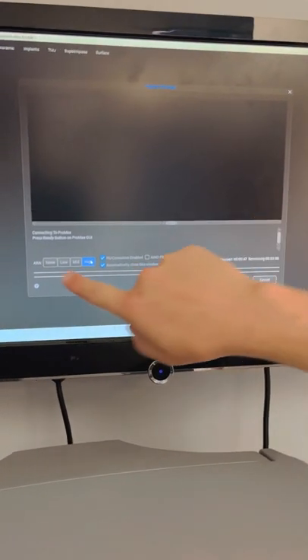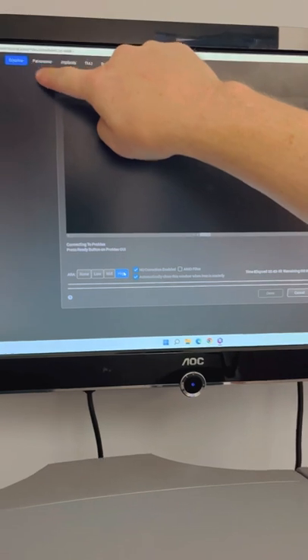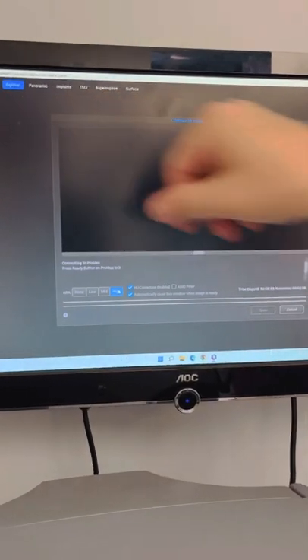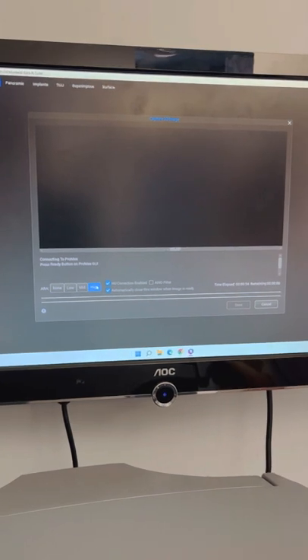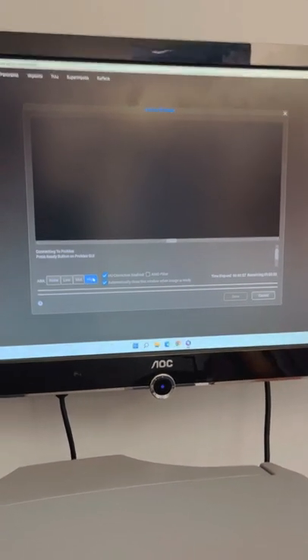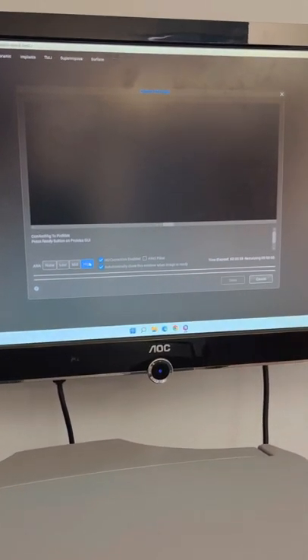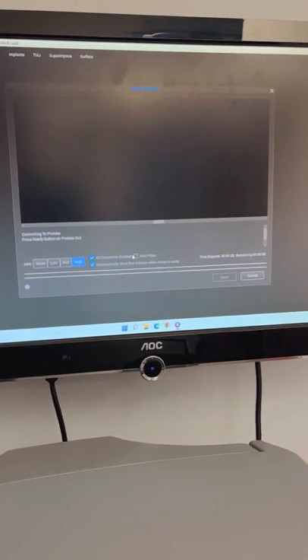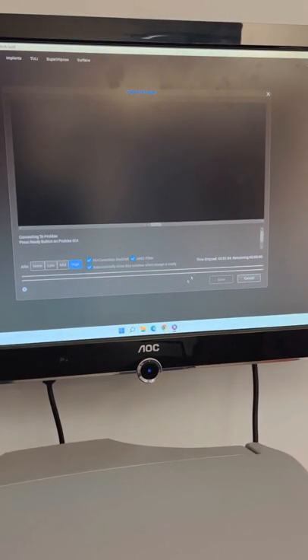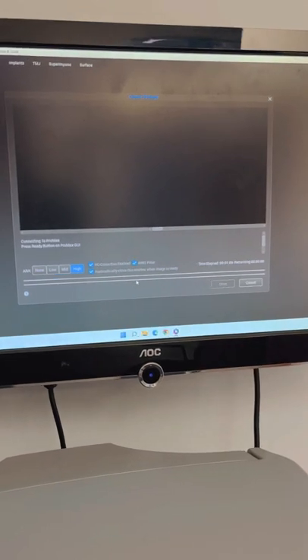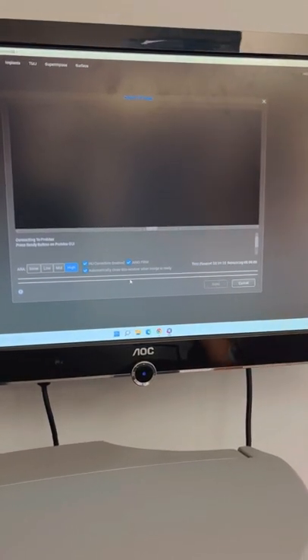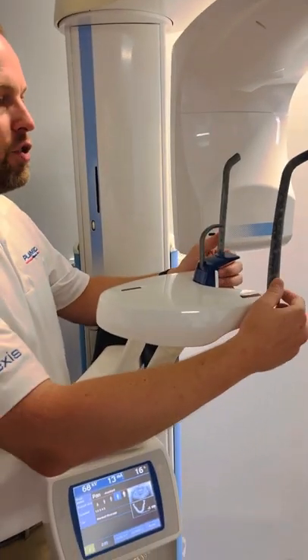The ARA button is in the top toolbar — there's a button there that lets you regenerate a whole new image at a higher level. But mostly you want to do this by default. Check this checkbox and it becomes the default — you won't have to check it again. Once that's set, you're almost ready for the patient.